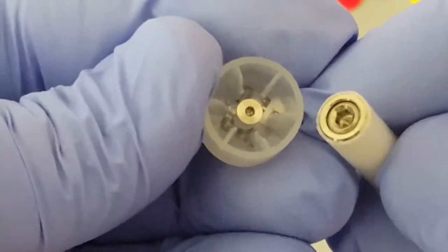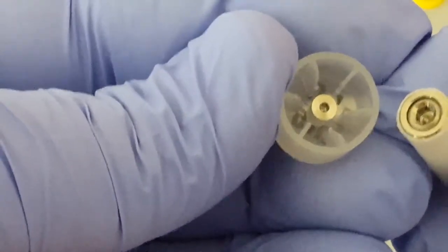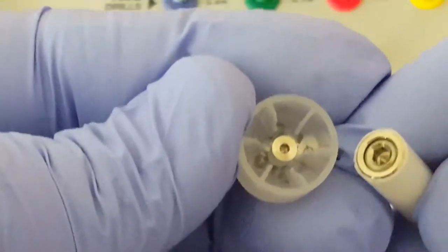The 3.25, 3.75, and 4.2mm implants also have the cover screw inside the cover.